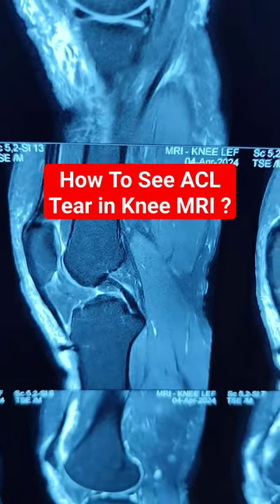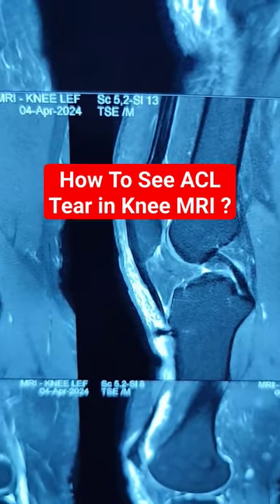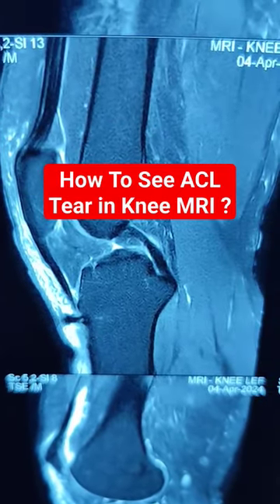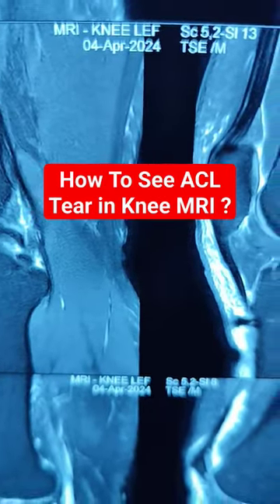This patient had a history of twist injury 3 days back. He has got a small abrasion over the knee also.